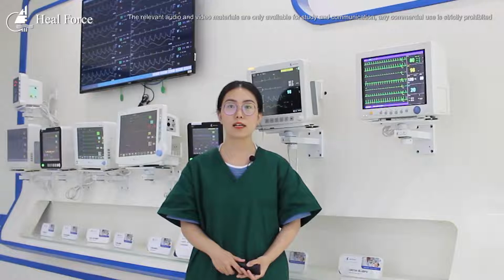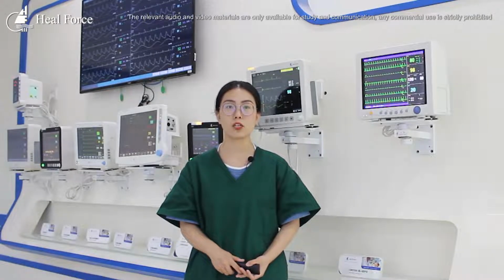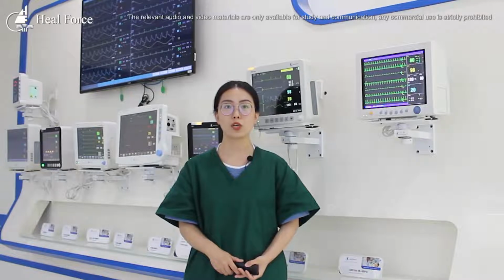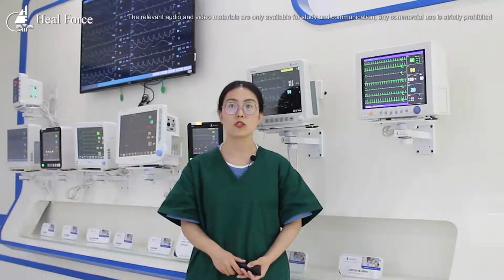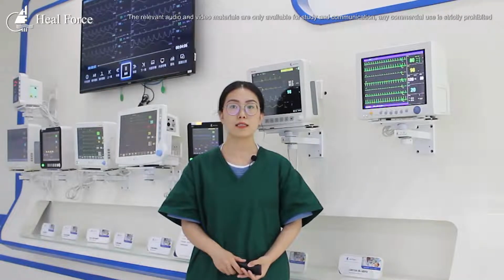The monitor can continuously monitor the physiological parameters of the patient for 24 hours, detect the changing trend, point out the critical situation, and provide the basis for doctors to deal with emergency treatment, so as to minimize complications and achieve the purpose of alleviating and eliminating the disease.